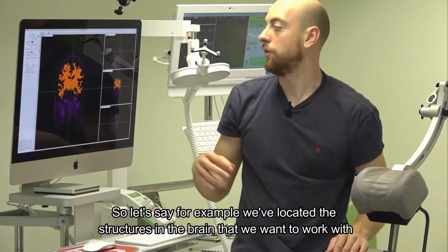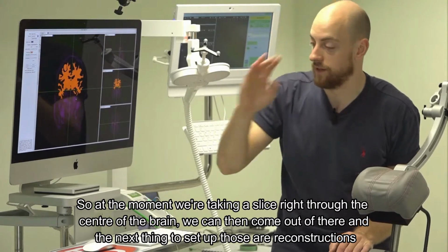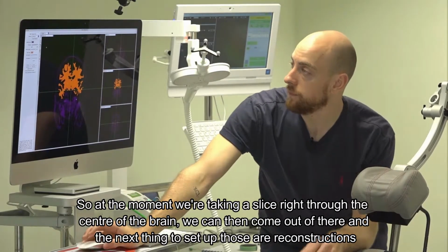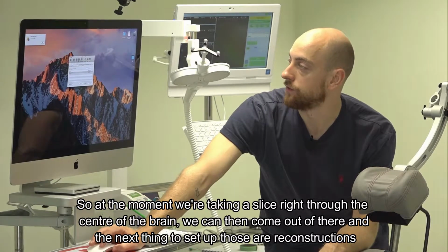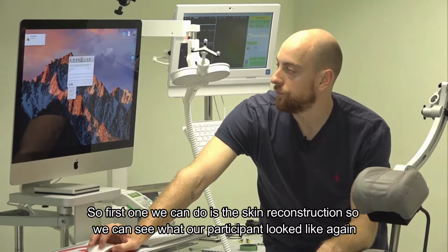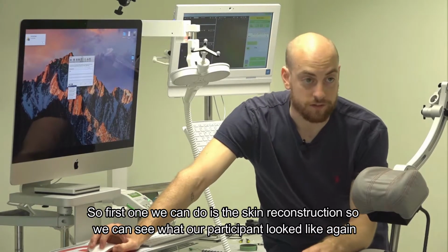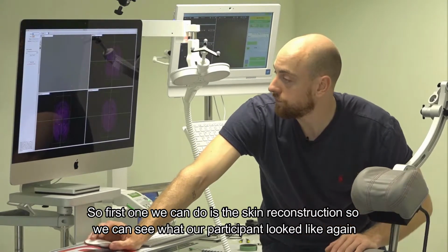So let's say, for example, we've located the structures in the brain that we want to work with. At the moment, we're taking a slice right through the center of the brain. We can then come out of there, and the next thing to set up is our reconstructions. First one we can do is a skin reconstruction, so we can see what our participant looked like.